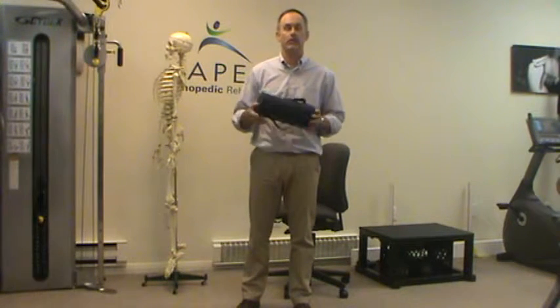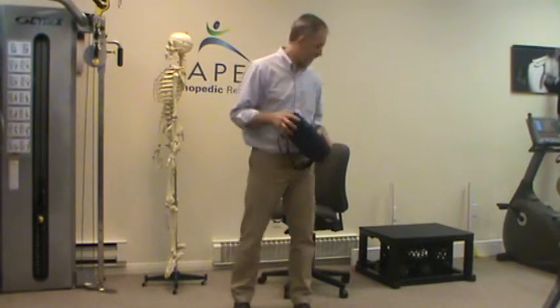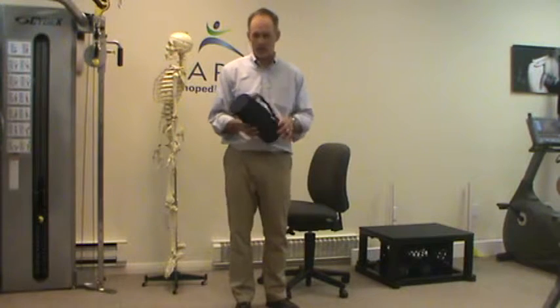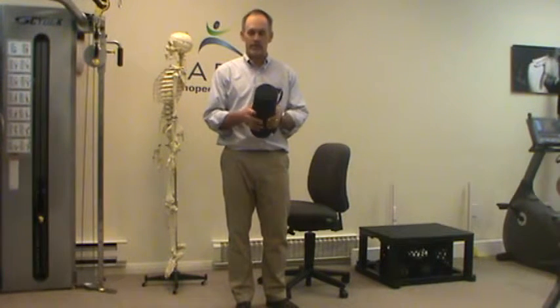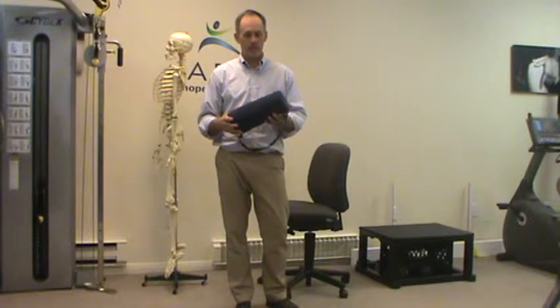I'm going to give you a few tips today on how to use a lumbar roll. You'll hear about them in different cars and such — a lot of them are already made. You can find them in certain chairs where they try to place a little lumbar roll. I prefer using a roll like this — this is a McKenzie roll, it's a standard size. Some people may find it too big, but you can vary the size or use a simple towel as this type of roll.